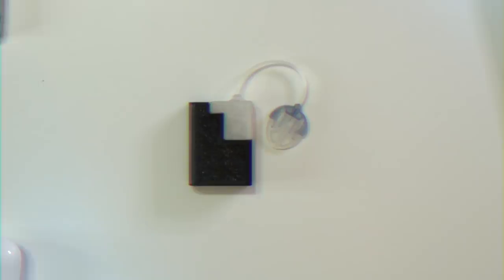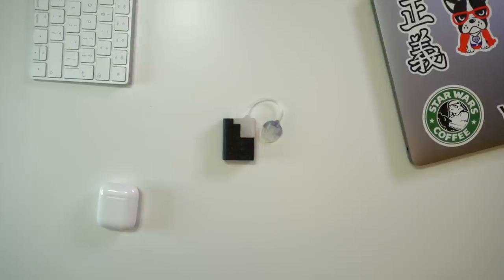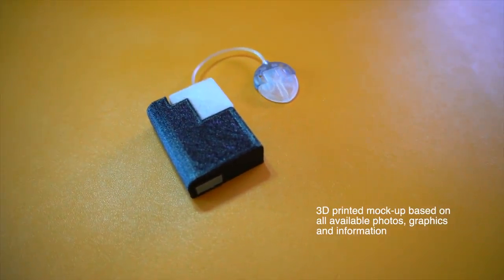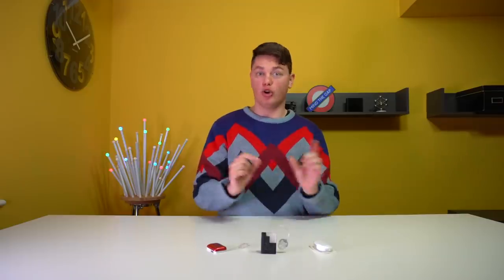Full phone control in the first half of 2021 is really the foundation of the second item on Tandem's pipeline, which is perhaps the most exciting part of their entire pipeline — the launch of the hugely exciting T-Sport patch pump from Tandem. A patch insulin pump is really the combination of a tubed pump and a pod pump, somewhere in between, and it usually has a short tube.